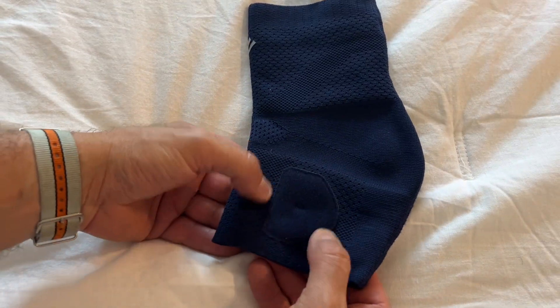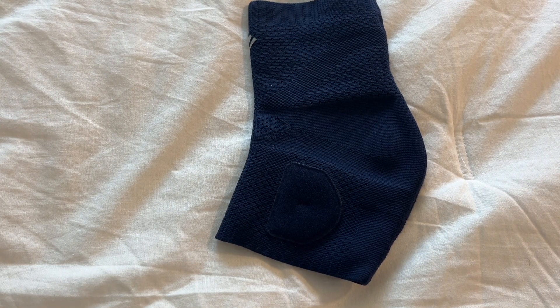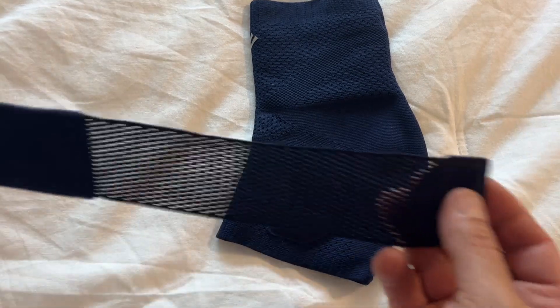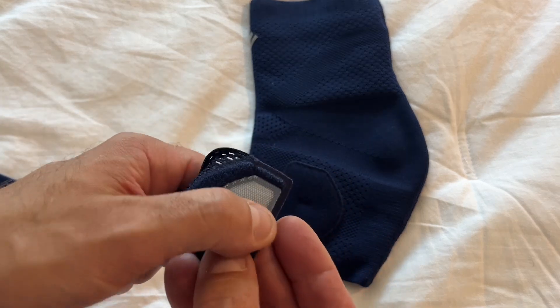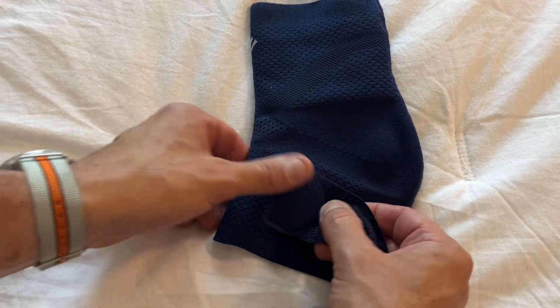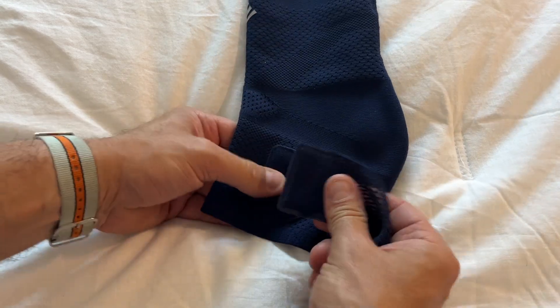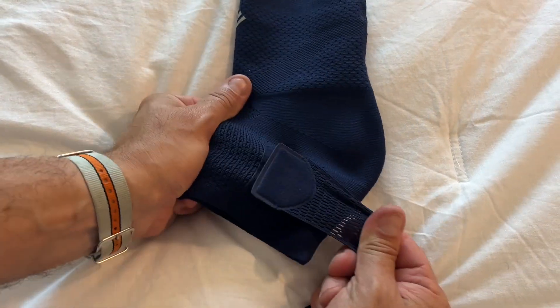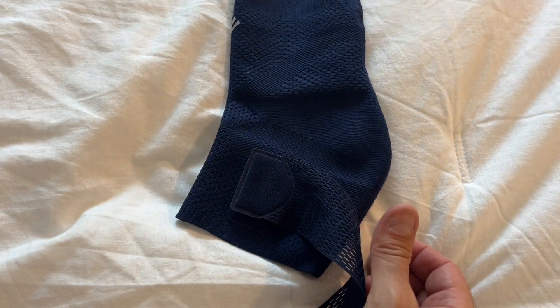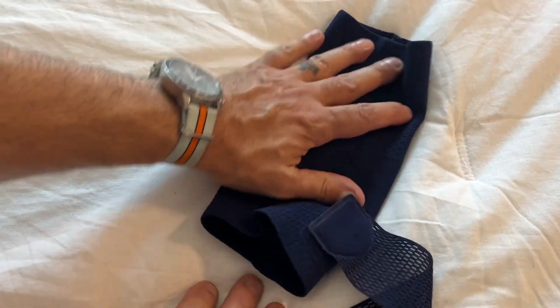As you can see here on one side, you have the soft velcro pad, and that's where you're going to add your first strip of the band. What I like about the band is it makes it really easy — it shows you number one, it's the same shape, so you go ahead and line it up, stretch it on there, and that velcro is really strong. As you pull and as you move, this really stays with you, making sure it's not going to get loose throughout your workout or your game.